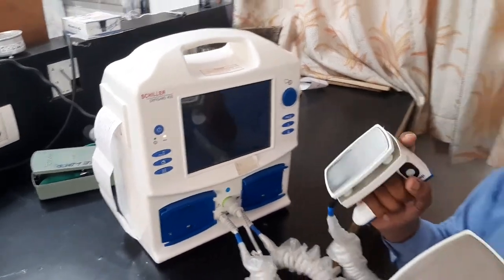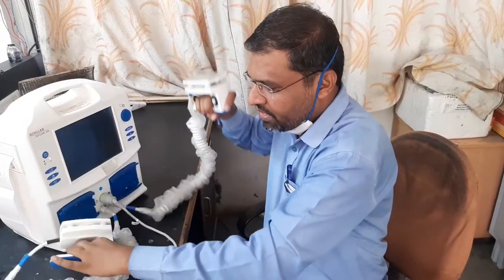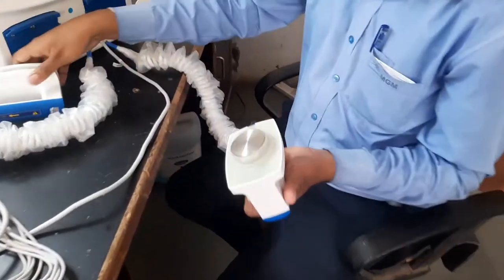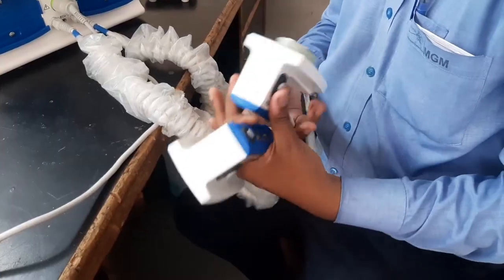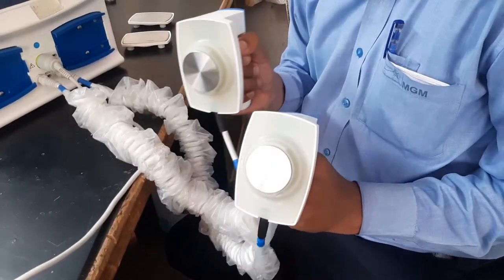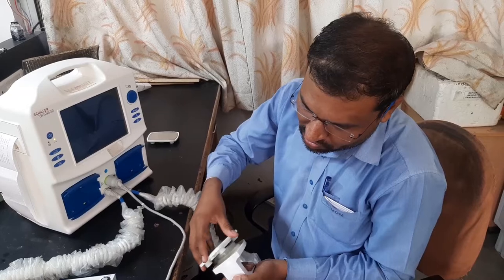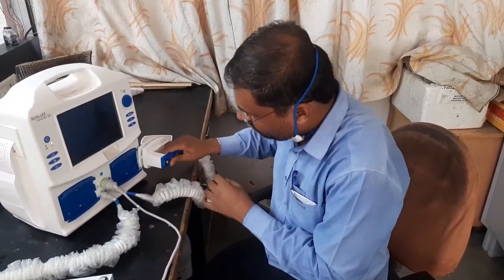This is the adult shock delivery pad, but the company has also provided a pediatric pad. To access it, you just rotate it like this — inside there is one more smaller pad. Rotate it out and you can use this smaller shock delivery pad for pediatric or child patients. If the patient is an adult, fix the adult pad back by aligning the knobs and rotating to lock it in place.